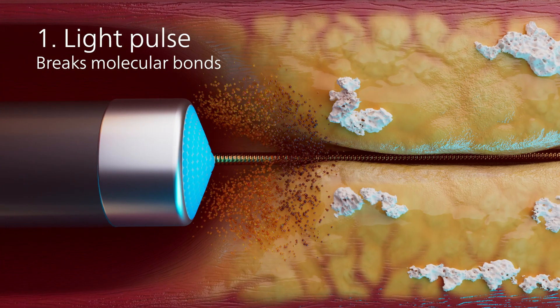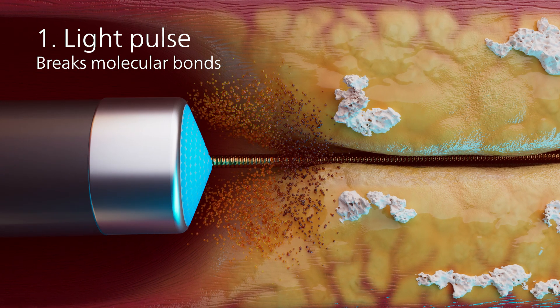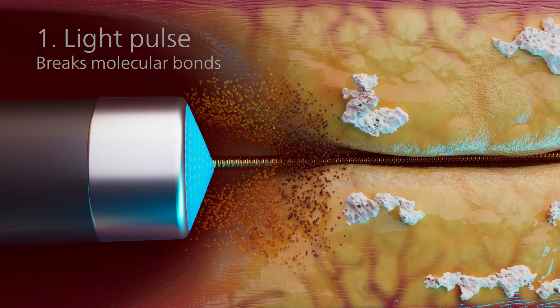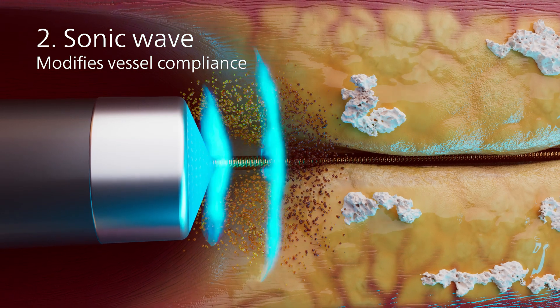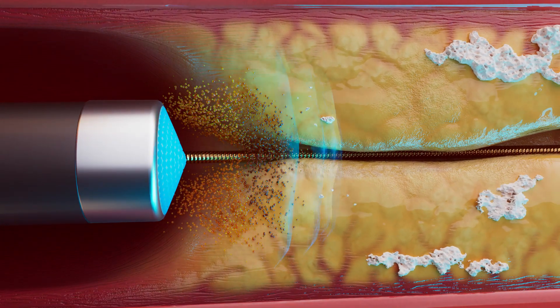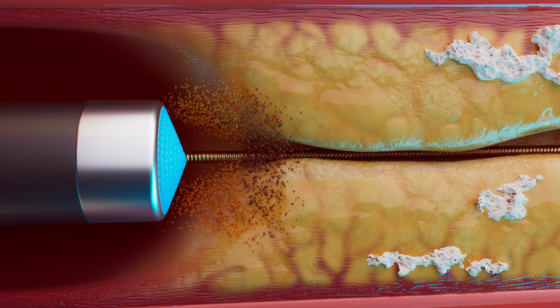The laser's ultraviolet light pulse breaks molecular bonds of lesion tissue. As the molecular bonds break, pulsating sonic waves are created, modifying hardened tissue.